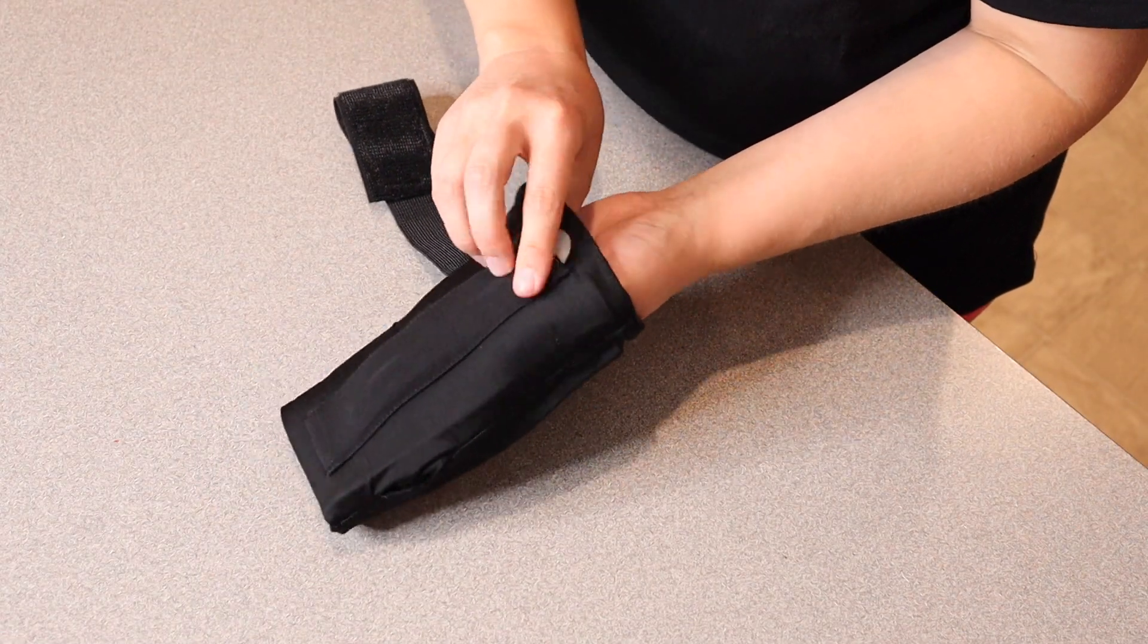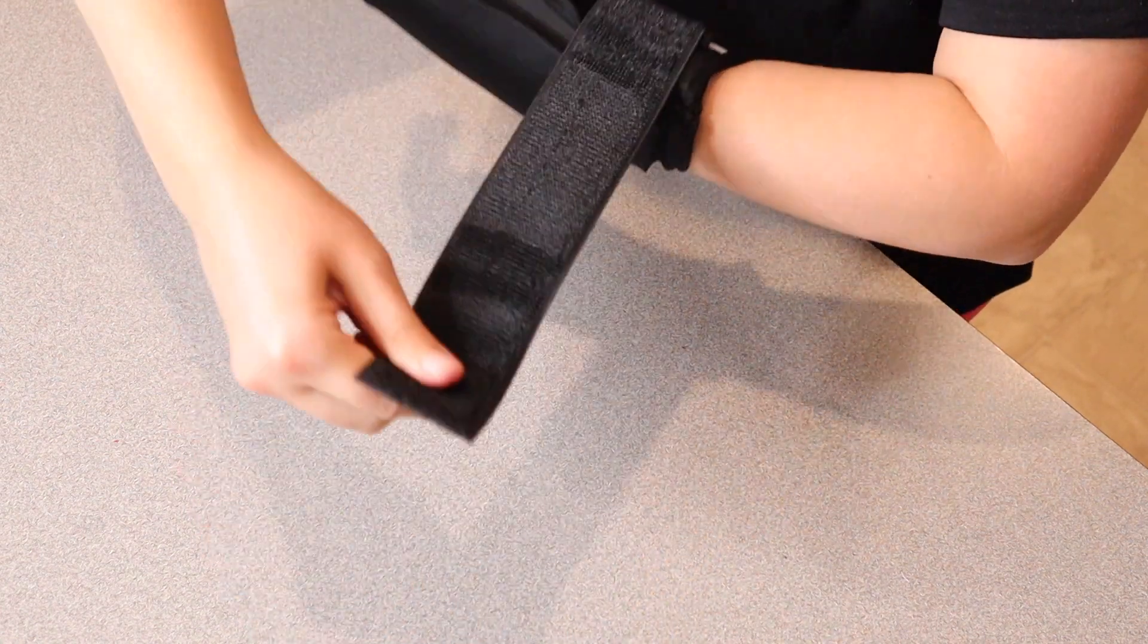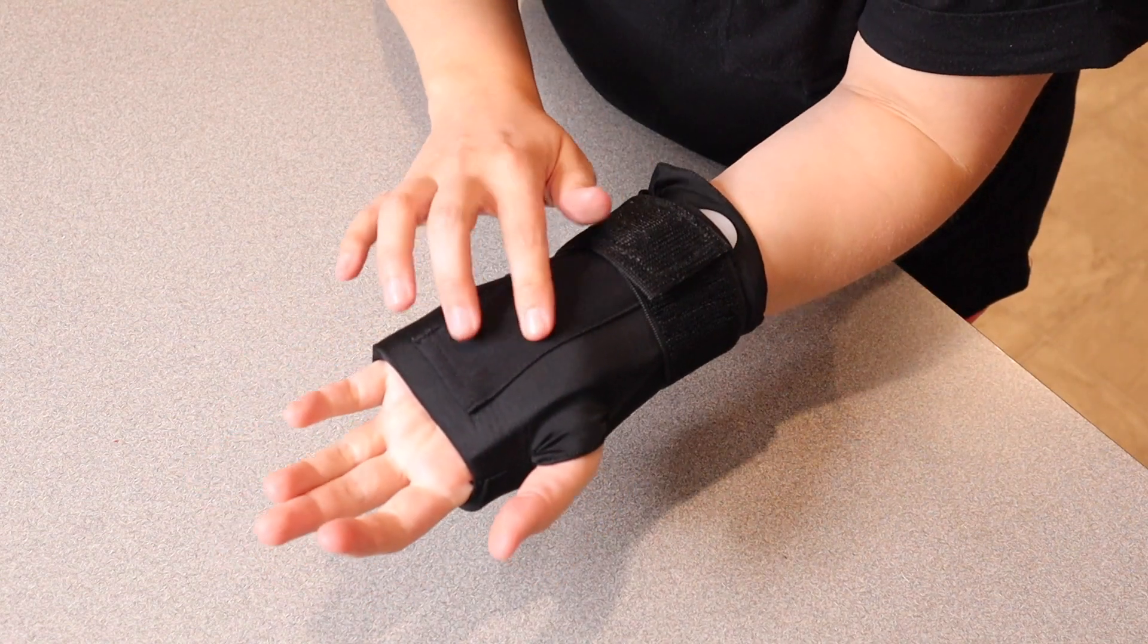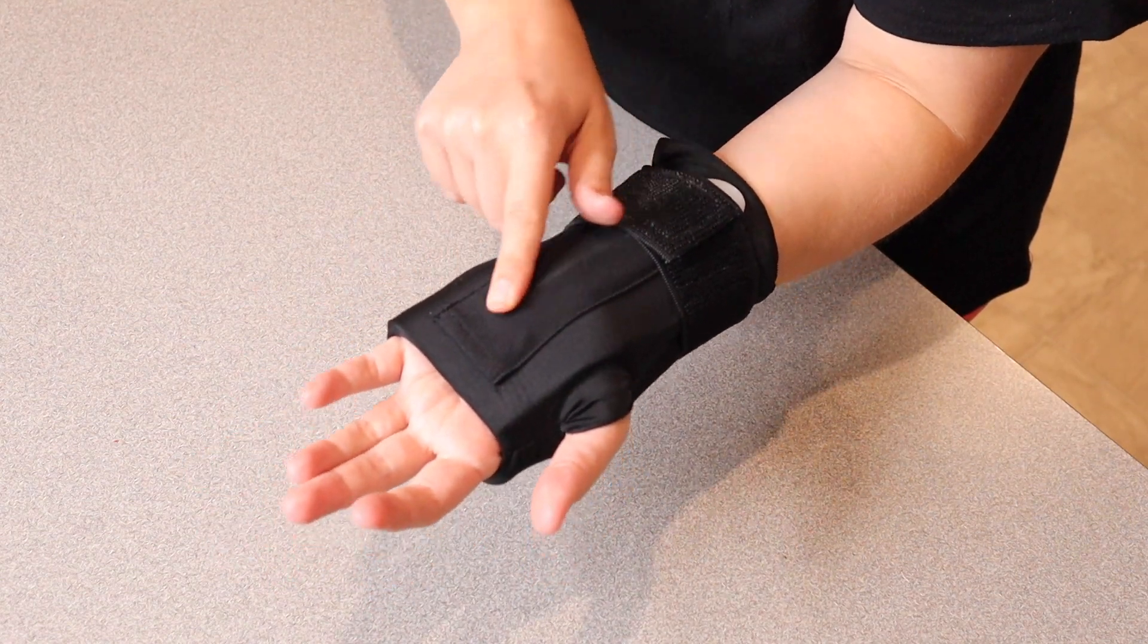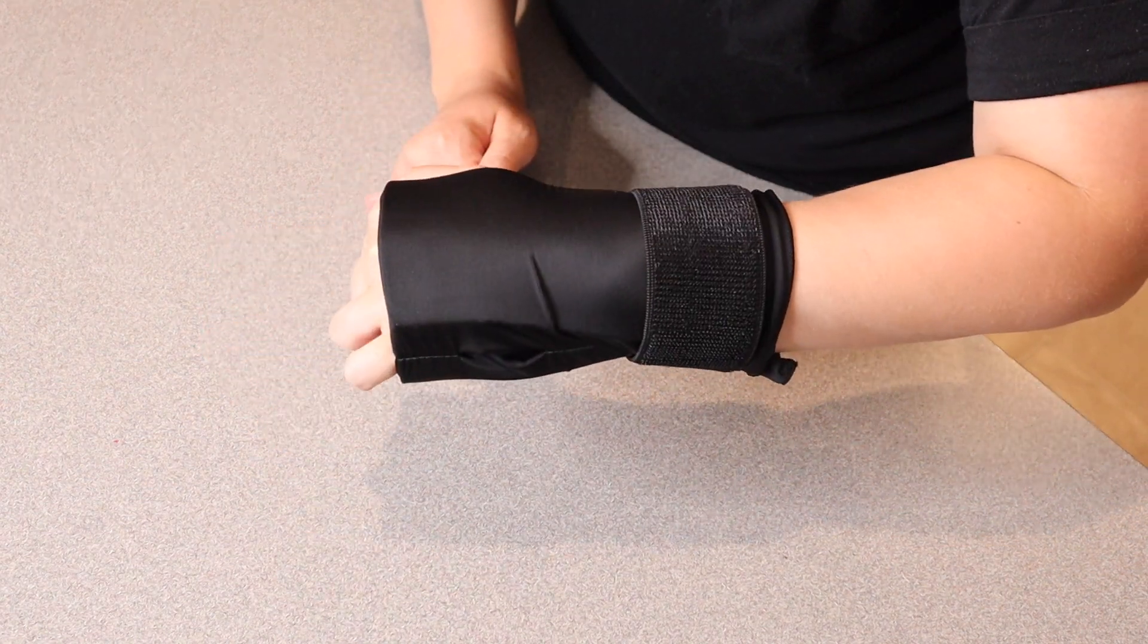Okay now that I just took this out of the freezer it feels really nice and cool to the touch. So I'm just gonna wrap this around until it's nice and comfortable. Okay I really like that extra added support from that splint here and the cushiony feeling from this gel pack is really nice.